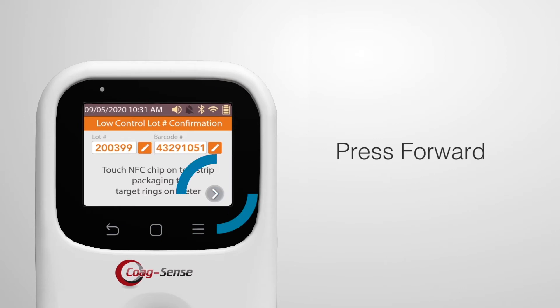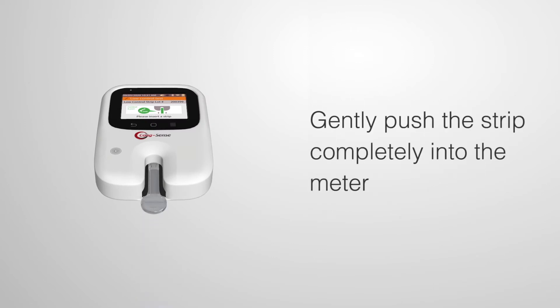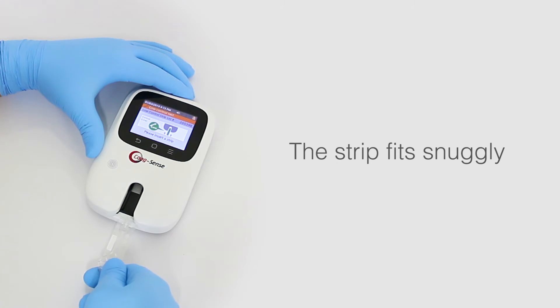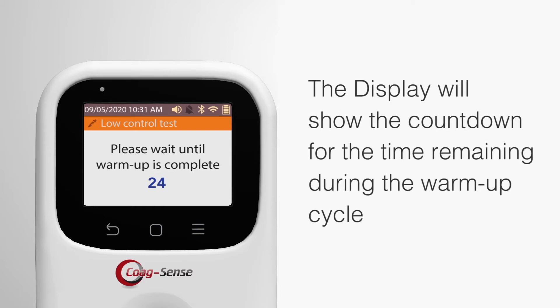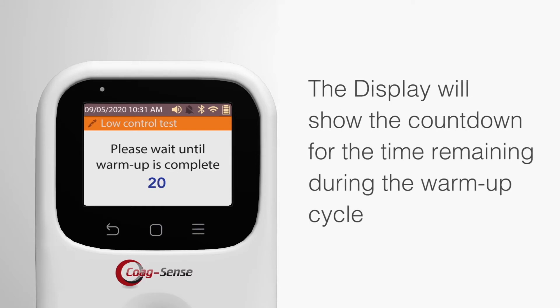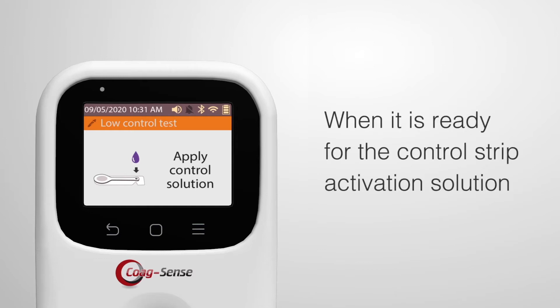Then press the Forward button. Hold the round end of the test strip with the wheel facing upward and gently push the strip completely into the meter. The strip fits snugly and should be pushed all the way toward the back wall of the strip holder. The display will show the countdown of time remaining during the warm-up cycle. The meter beeps once and displays 'Apply Control Solution' when it is ready.